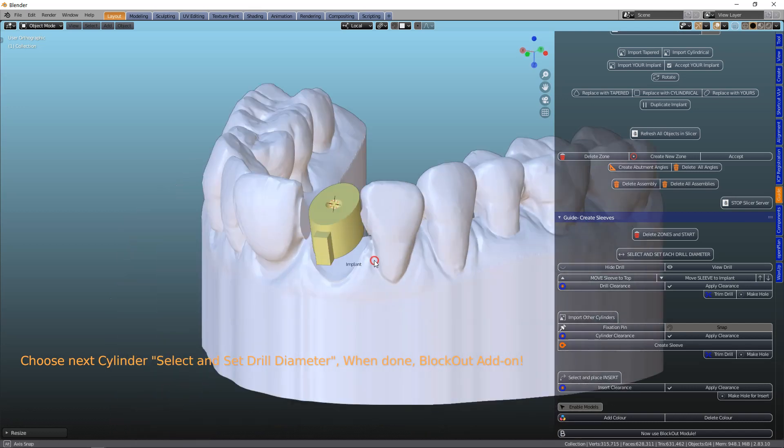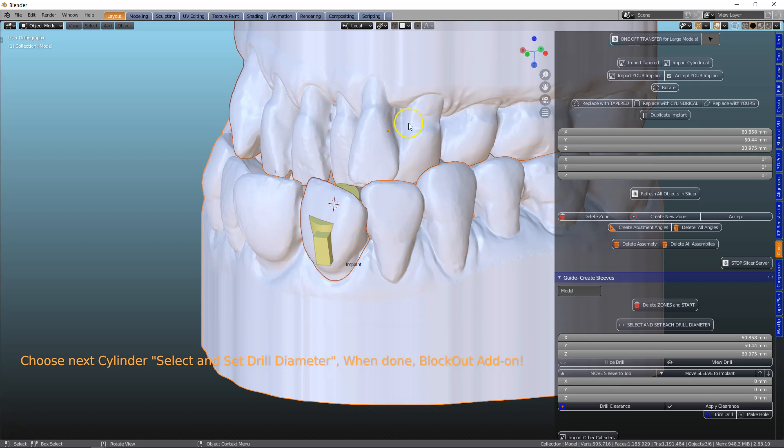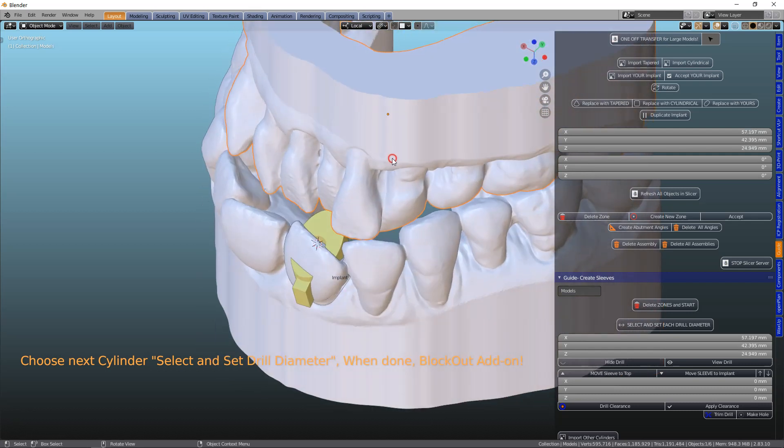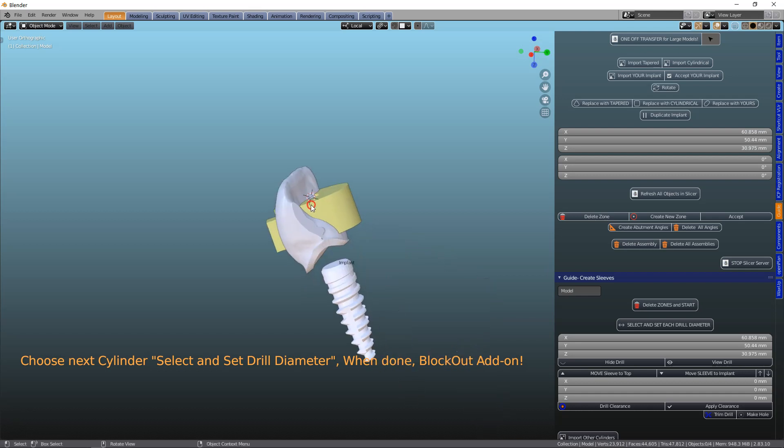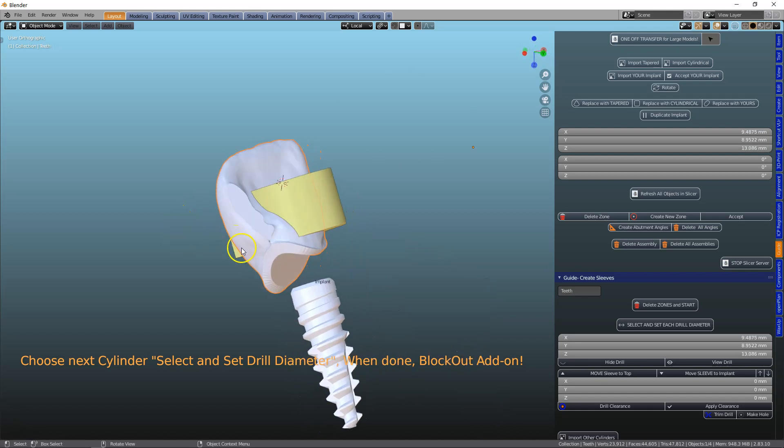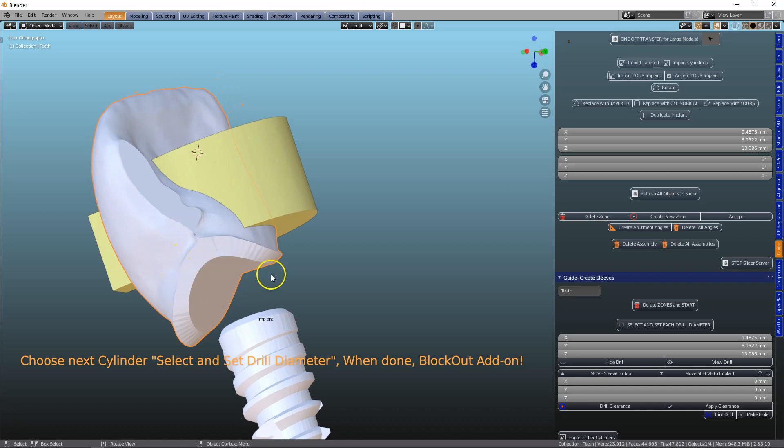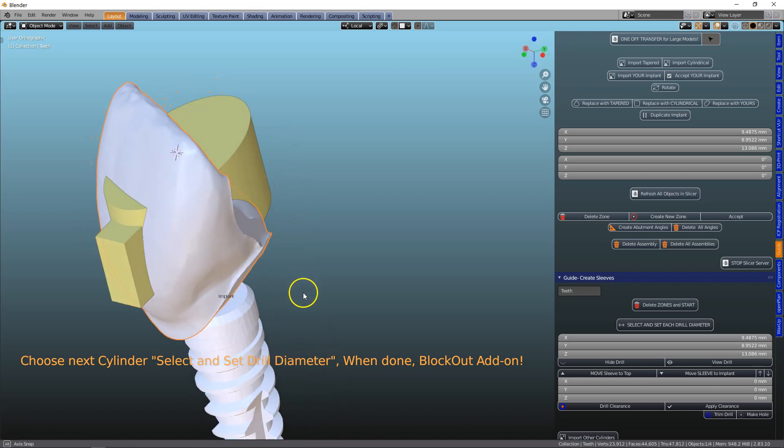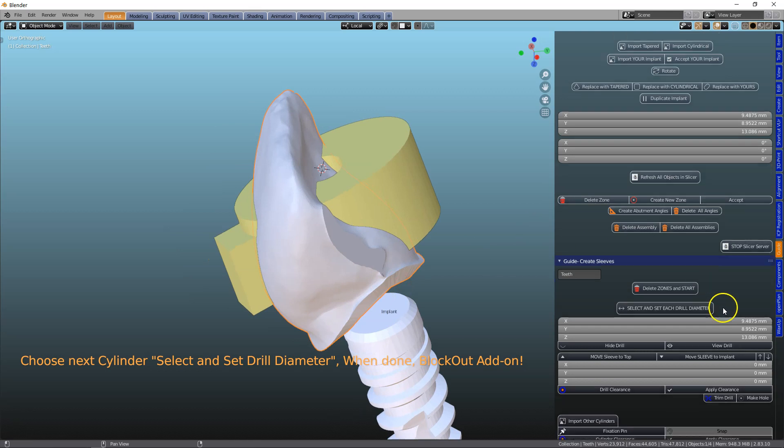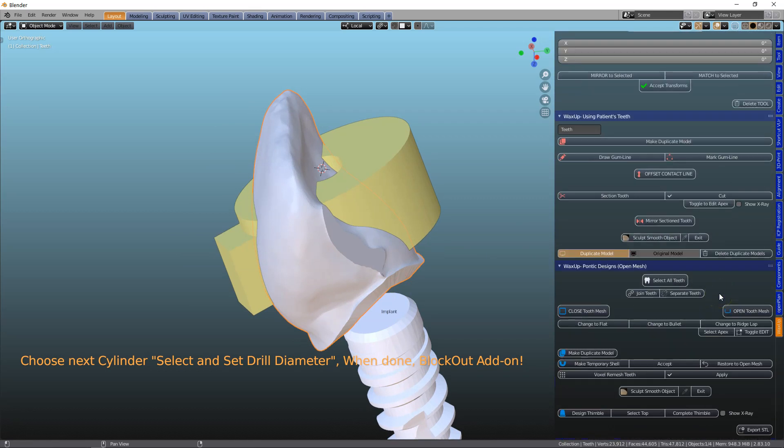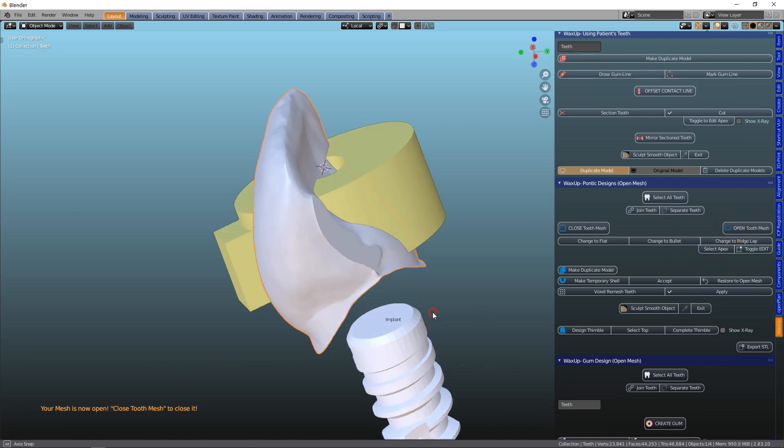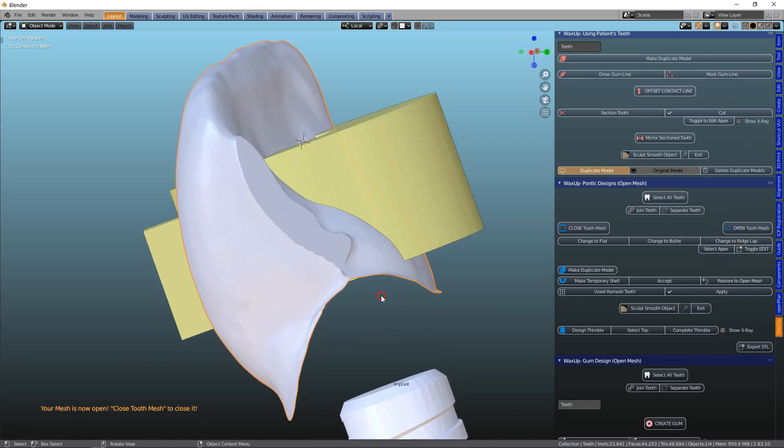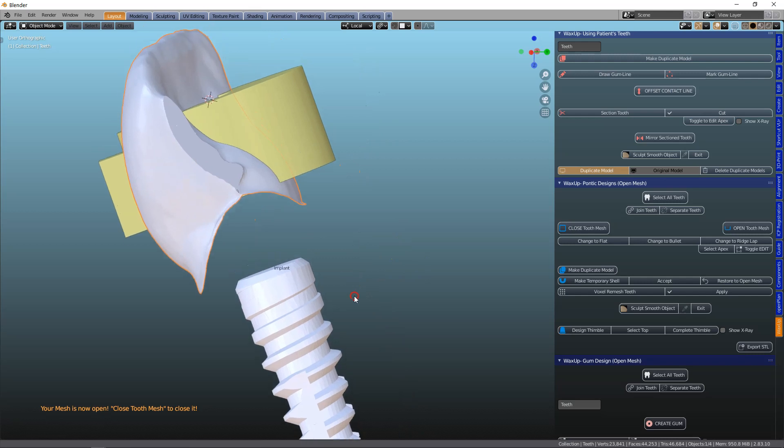Next thing I want to do is I want to make my implant tooth. So let's hide everything. This model I don't need to view at the moment. We've got our tooth over here. In the Wax Up module, we need an open tooth. So we're going to go back to the Wax Up, to the Pontex, and we're going to open this tooth up like that. And then we are able to join it to our abutment. But we don't have an abutment in yet.